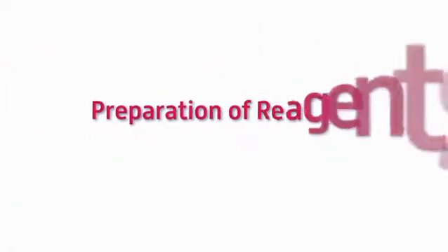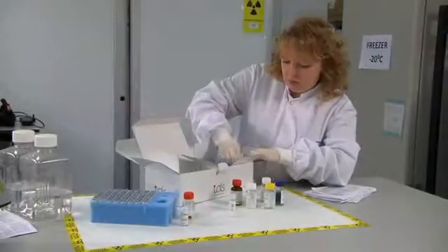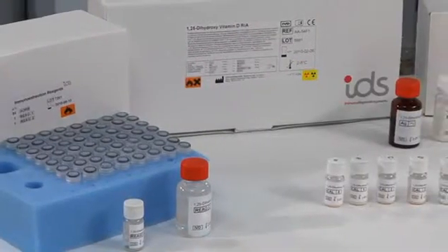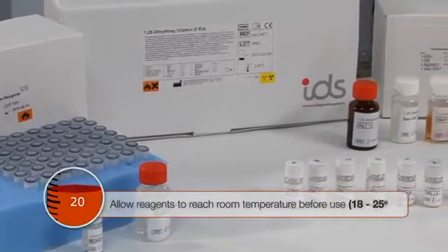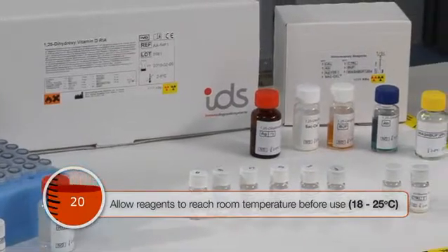Preparation of reagents, controls and wash solution. Allow all reagents to come up to room temperature before use. This is between 18 and 25 degrees Celsius.